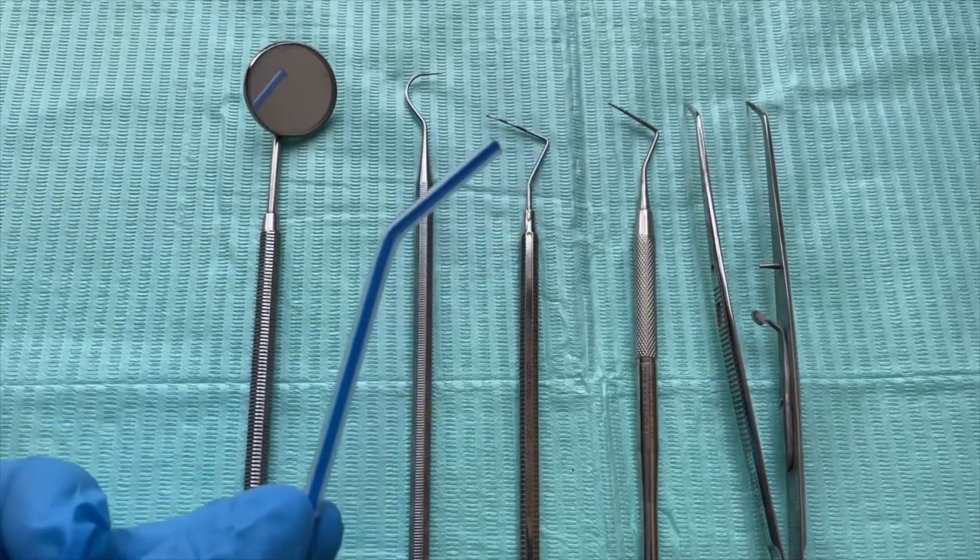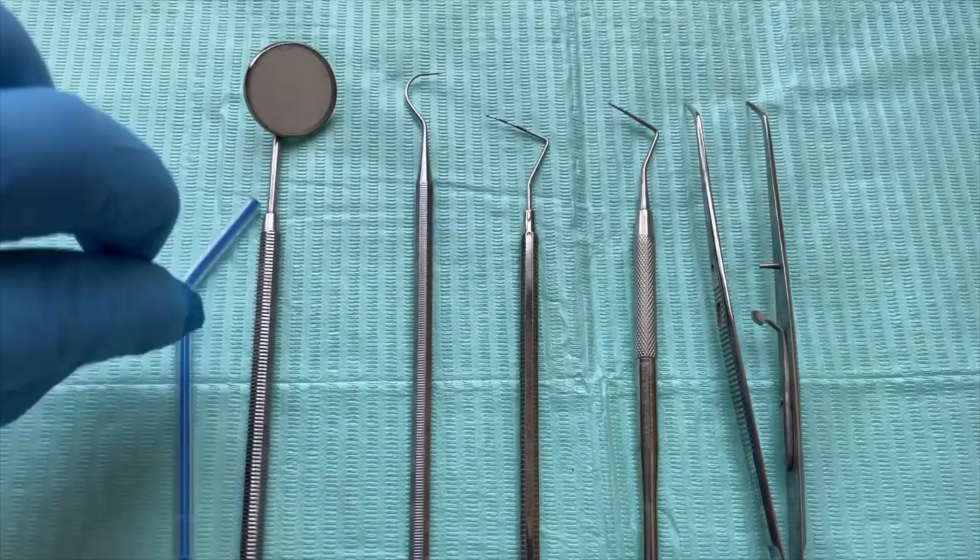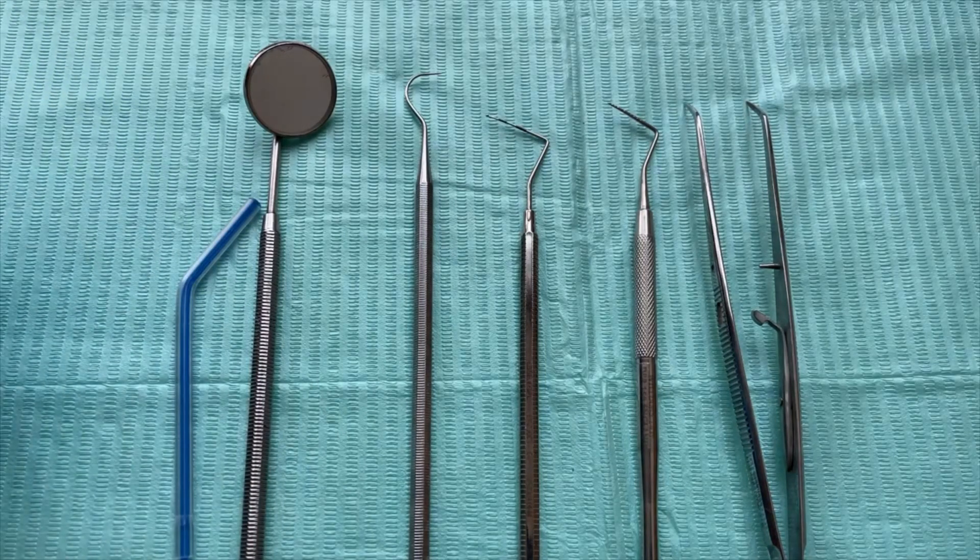So that's the preparation for a dental checkup. You must also be prepared that your clinician or dentist will be asking for x-ray holders, whether you're doing a bitewing or a PA — PA stands for periapical. If you don't know what the types of x-ray holder are, I made a video on that, so you can find it on my YouTube channel.